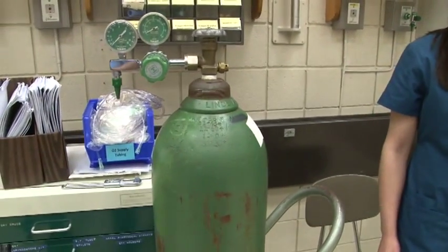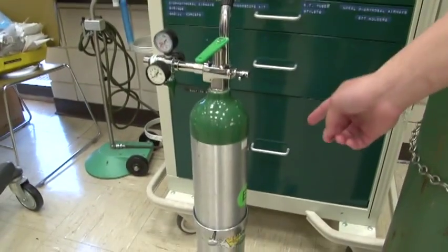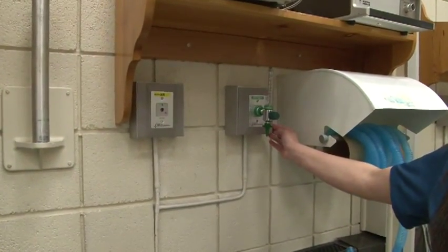Oxygen is a medical drug that should be prescribed by a physician. The tank color is green, but in some countries the tank color can be white. We have the H tank, the E tank, and we also have our wall outlet in which oxygen therapy can be administered.